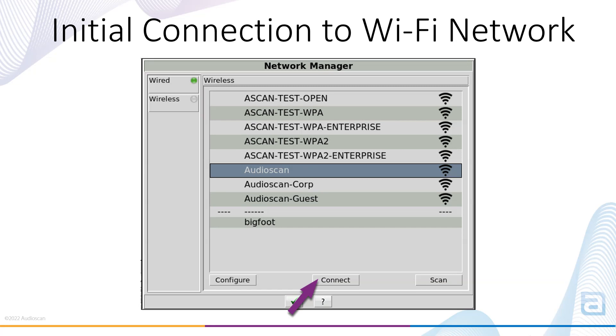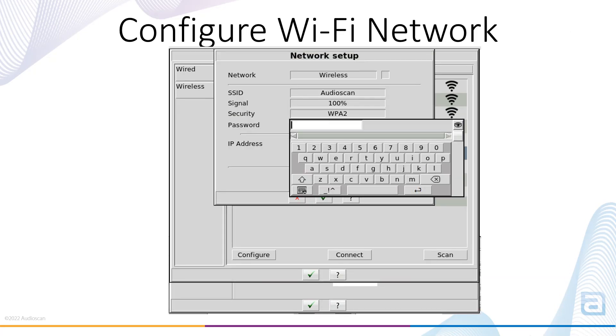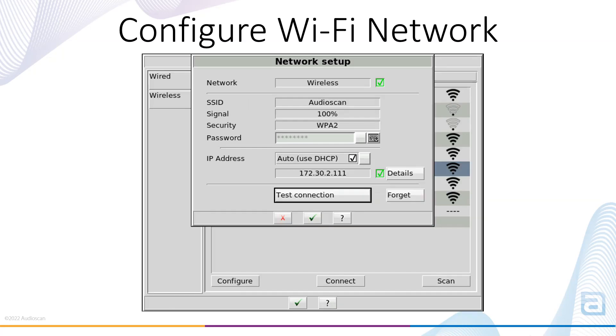If it's the first time connecting to the network and you have not entered the Wi-Fi password, you will first need to select the Configure button. Select the Virtual keyboard, connect a USB keyboard, or use your PC keyboard through the remote console to enter the Wi-Fi password. Once entered, select Test Connection to ensure the network successfully connects. If the connection is successful, there will be a green check beside network and IP address.